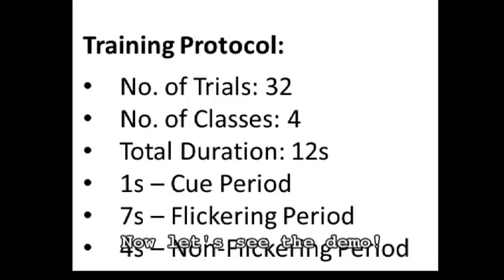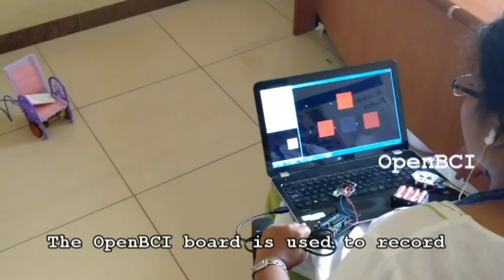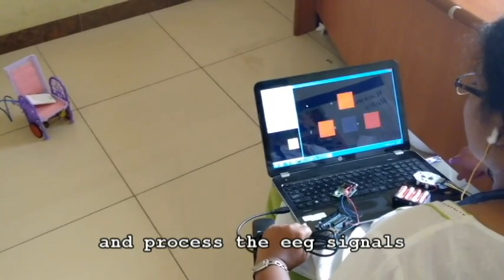Now let's see the demo. Here is the experimental setup. The OpenBCI board is used to record and process the EEG signals.